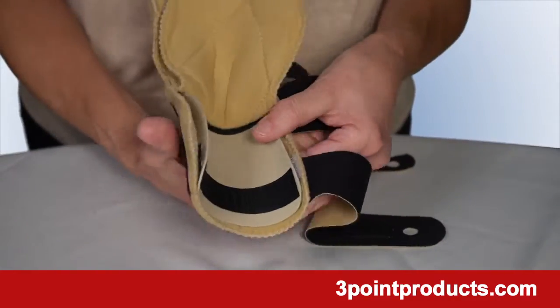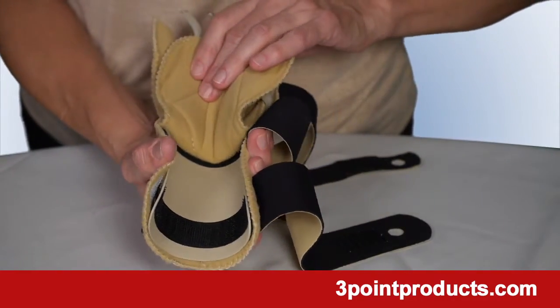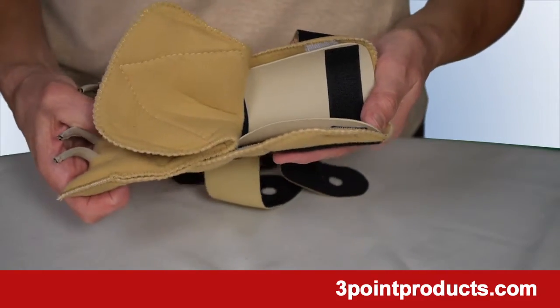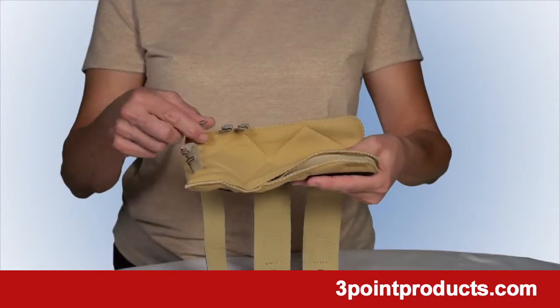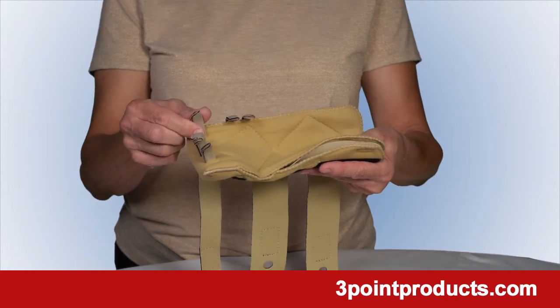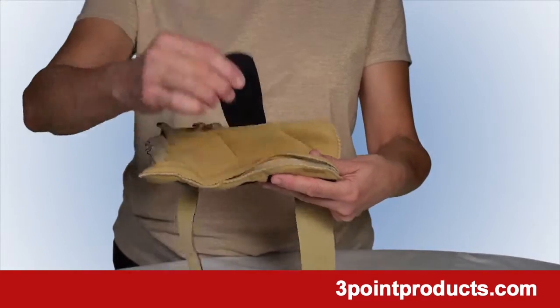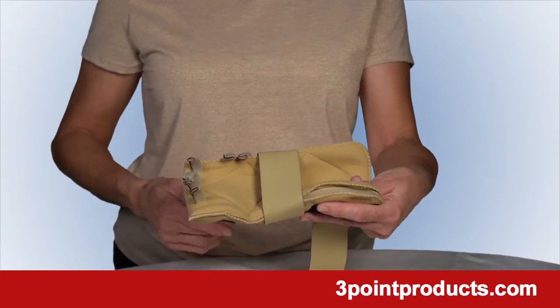The Comforter Splint has a molded inner shell that prevents you from sleeping with your wrist in a crooked position. The cushion stays are adjustable to help position your fingers to keep them straight, and the soft straps have holes to make them easy to pull on and take off.